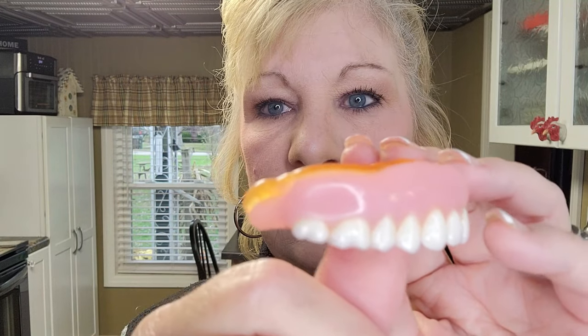If you want to go about your day now, just go about your day and your teeth will stay in. Do this in the morning if you have time, like on the weekend or something, because some might ooze out and you might have to take your denture out and just trim. But look — there's my impression and see how it's just up over my denture. Leave that there, don't trim that off, because that's helping create the seal that holds your denture in your mouth.